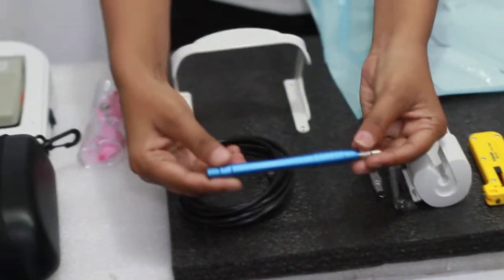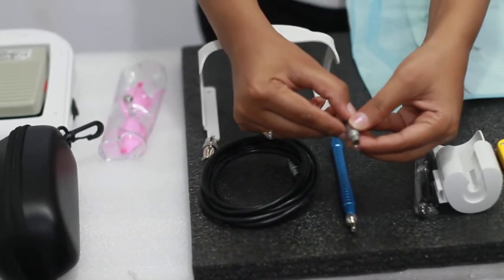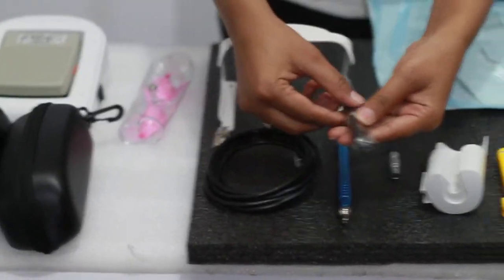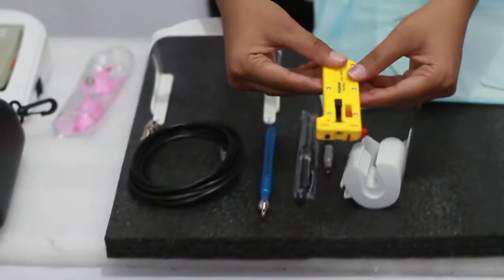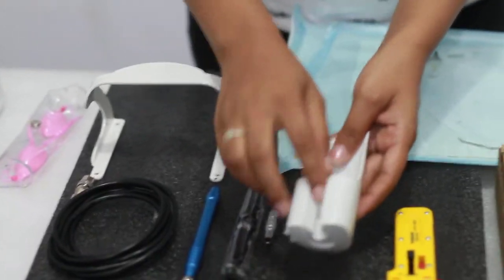This is your surgical handpiece. This is a key which will be connected to your main unit. This is a fiber cutter. This is a fiber stripper. This is your stand for your surgical attachment.